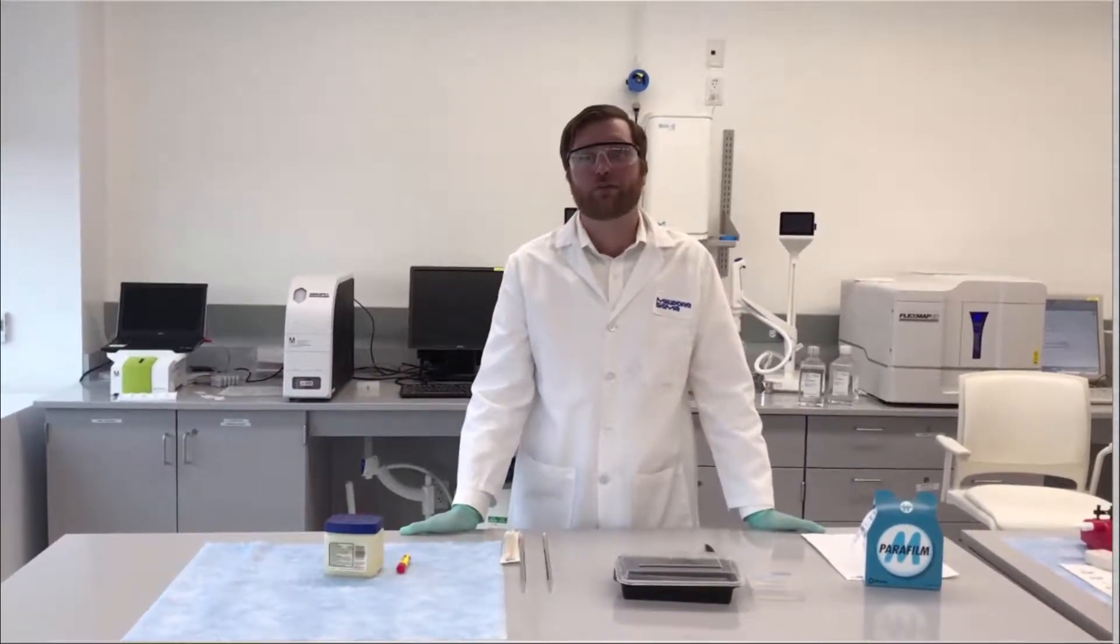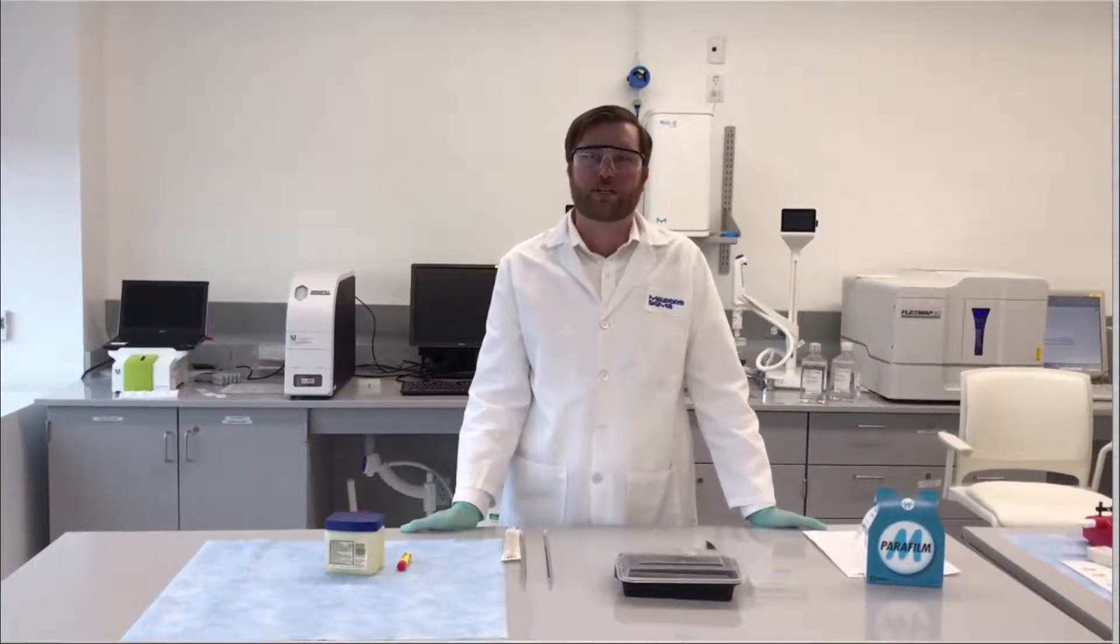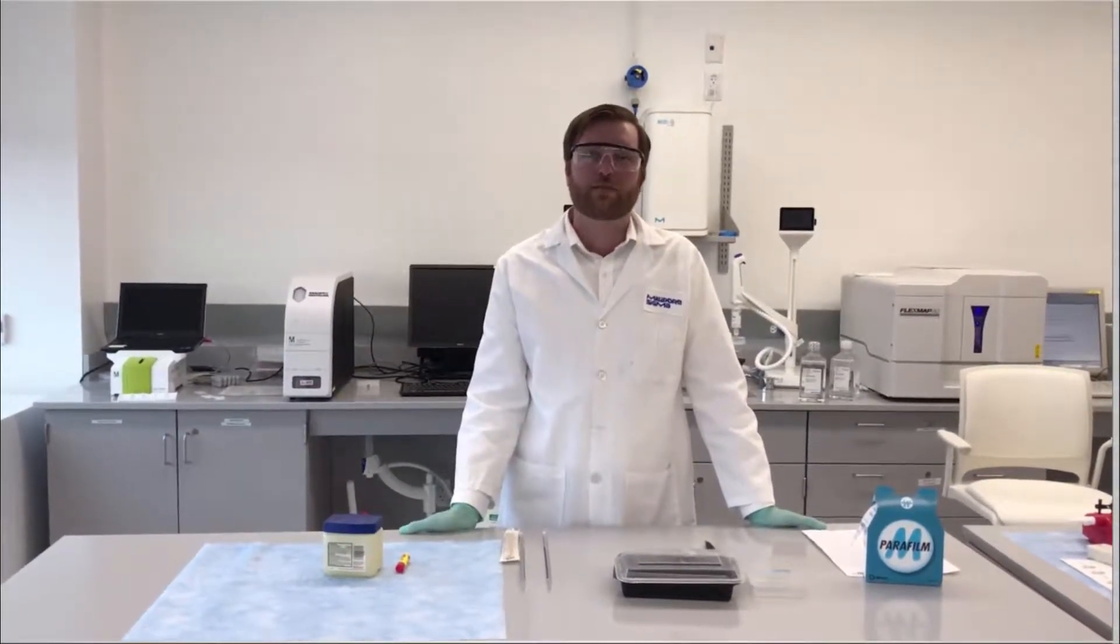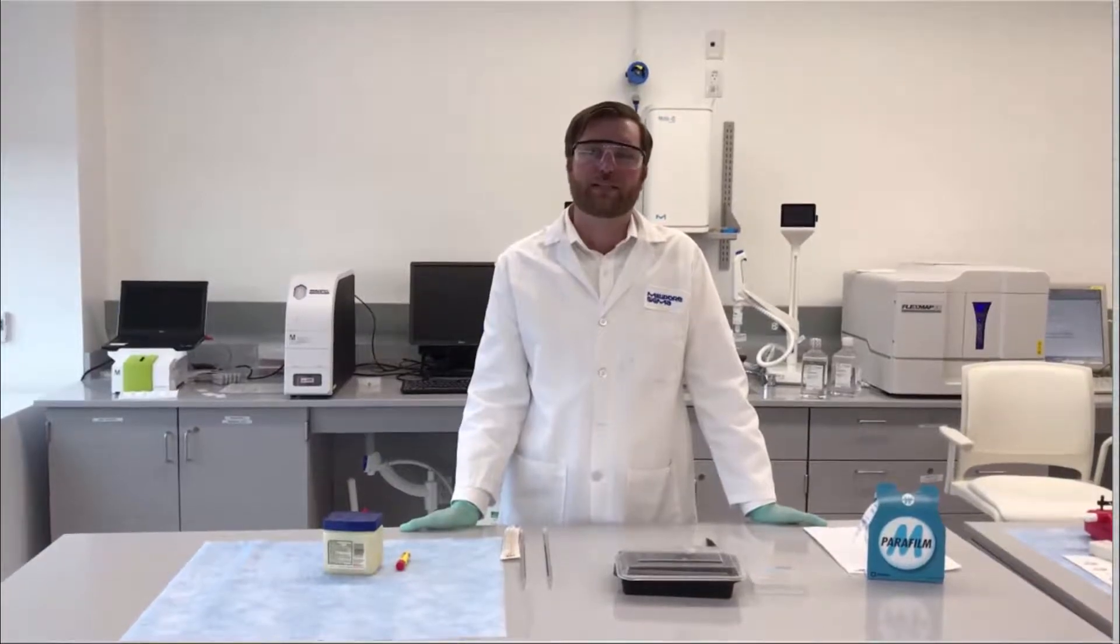Today, I'd like to share with you four tips and tricks that can help you save money when performing immunohistochemistry. This video is intended for an audience who is familiar with the immunohistochemistry technique.